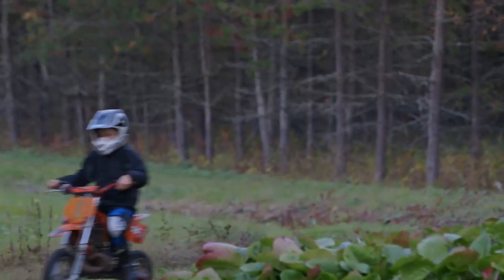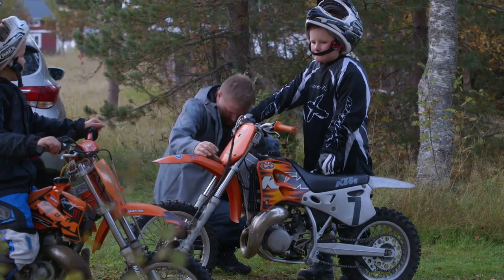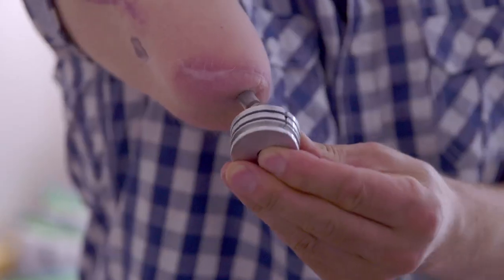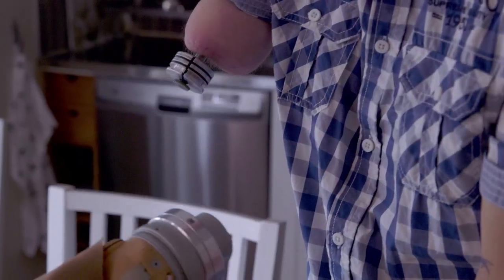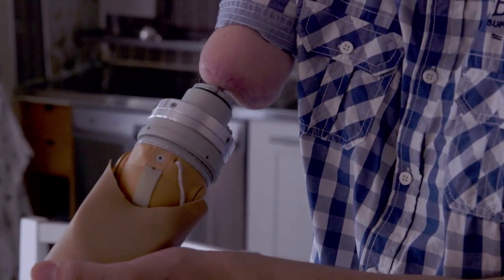Magnus lives with his wife and young family in the small Swedish town of Haparanda. After struggling with a conventional prosthesis, he agreed to test one that would be bolted directly into his bone and connected to his nervous system. It transformed his life.